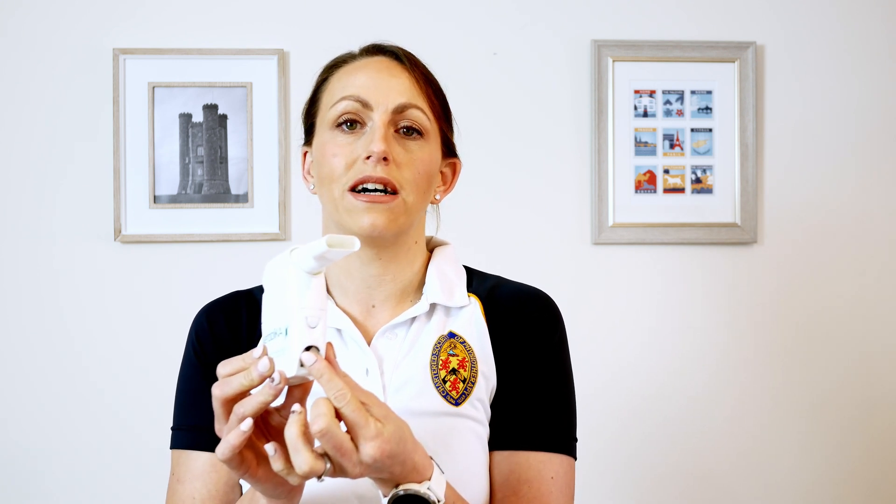When you're going to do your huff, you're going to exhale through the Aerobica. You can vary that exhalation — a small breath in and a long blowout, or a large breath in and a short hard blowout. You can adjust the dial; I normally start somewhere in the middle. There's no right or wrong — it's whatever helps to really move the secretions with the least amount of effort. Remember to minimise coughing so that when you do cough, you're bringing up as much phlegm as possible.